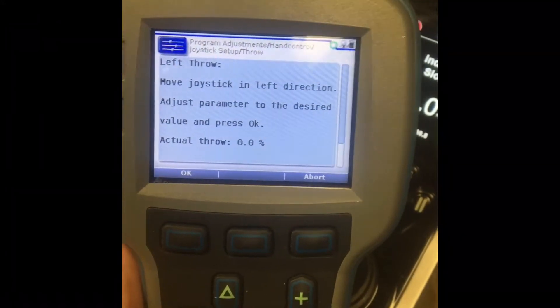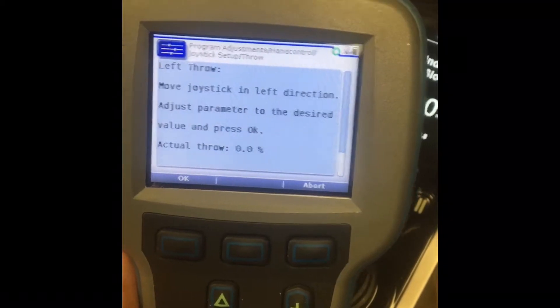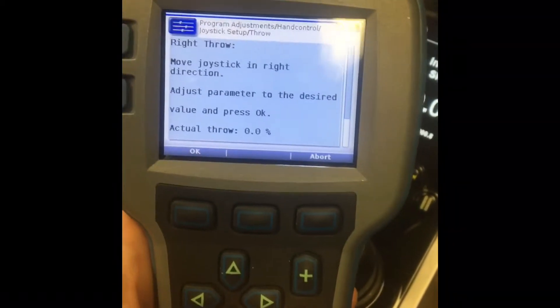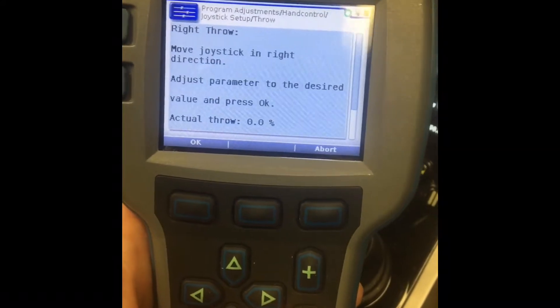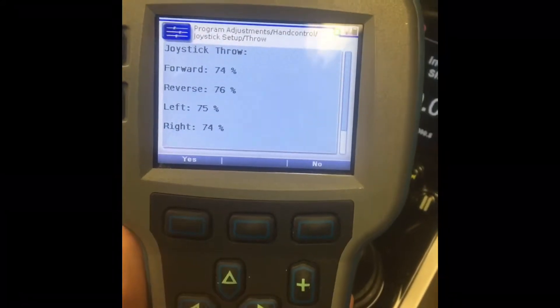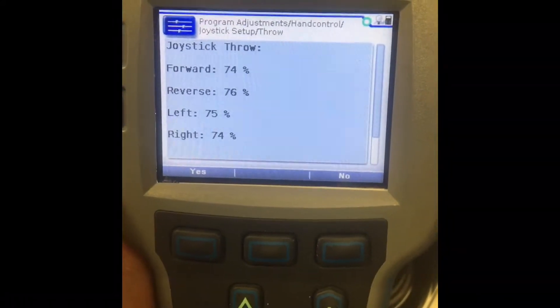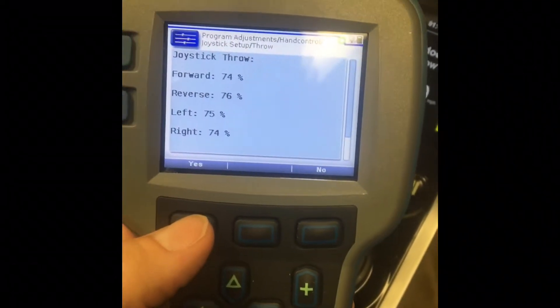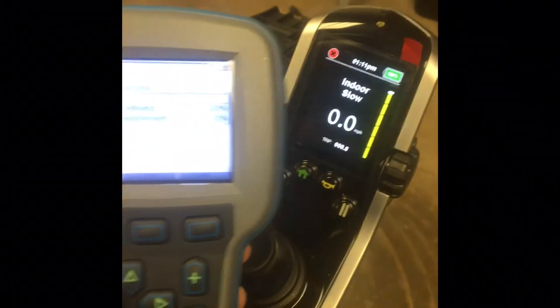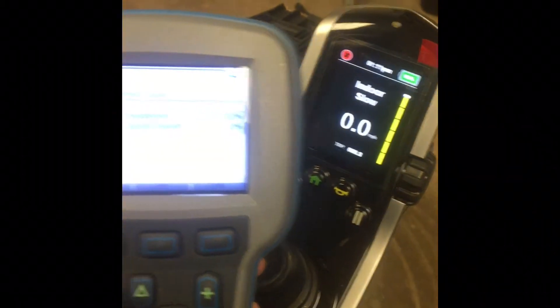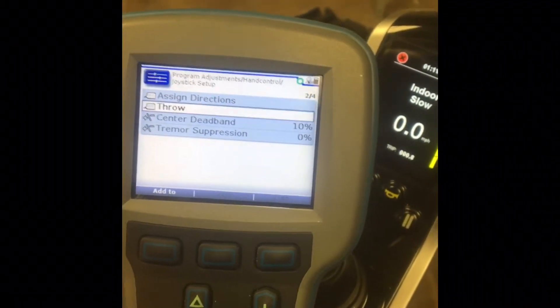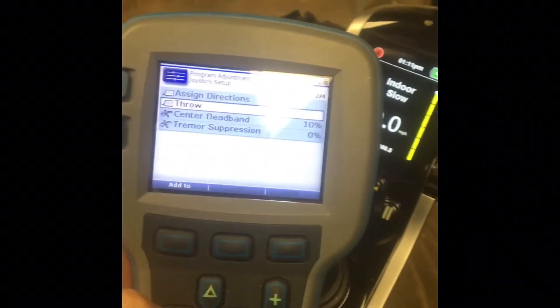Repeat that for each direction. It is difficult because you can't see the numbers, but at the end you do see what changes that you've made, and you can hit yes and it does save the values and reconfigures the chair. So those are saved. That's QLogic 3 until there is an update using the Handheld Programmer.